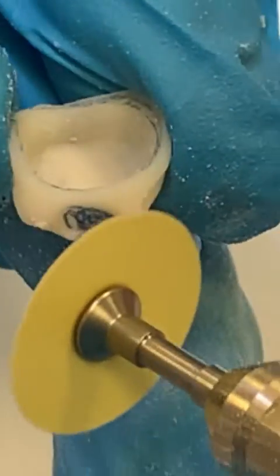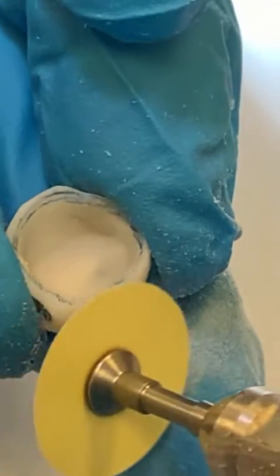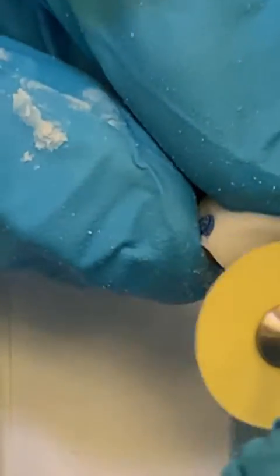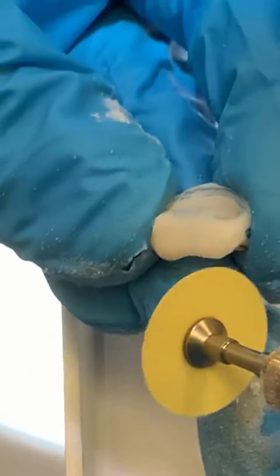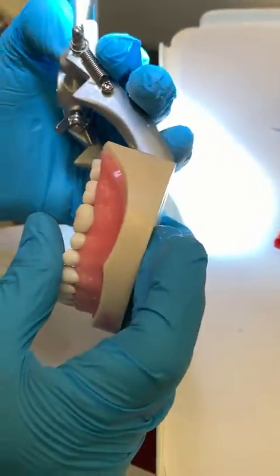In proximal — I'm allowed to go in proximal, but if I erase the mark it means I'm going to have an open contact. Now I'm going to go low speed. I'm going to start working my way in at probably 45 degrees or like this. This area where you see a little step — let's bring it down. Let's carefully use low speed for that. Done.